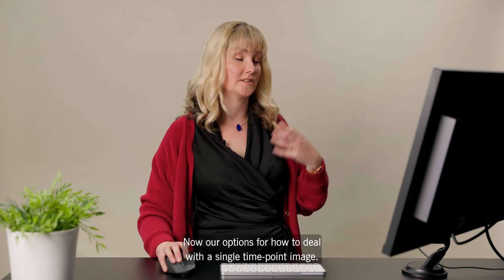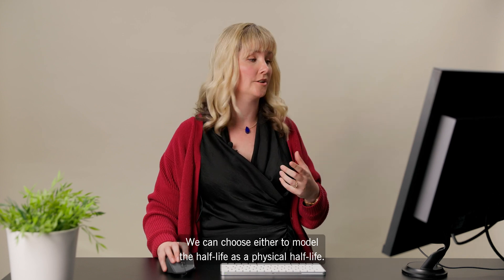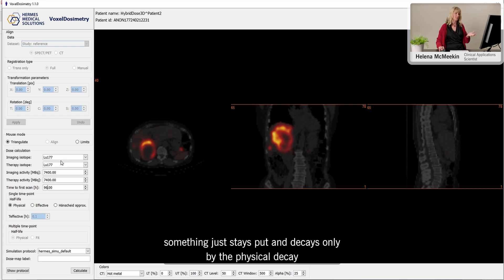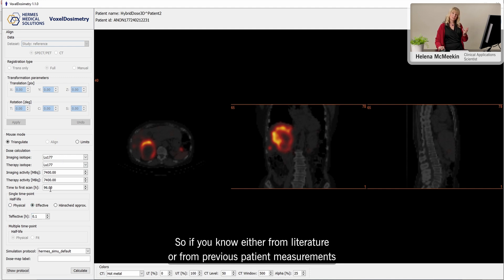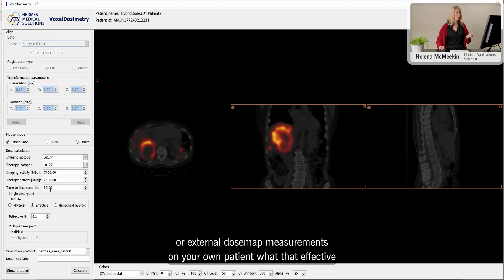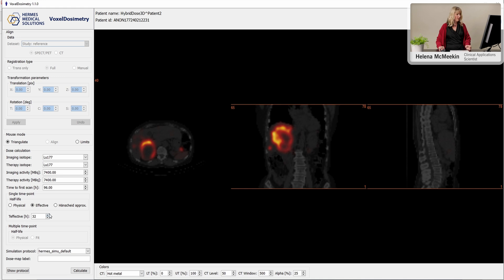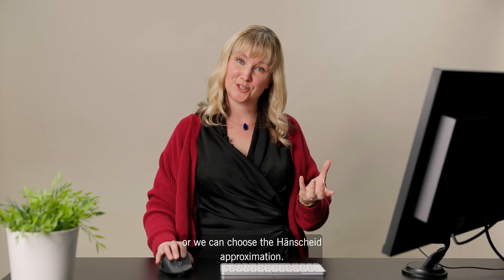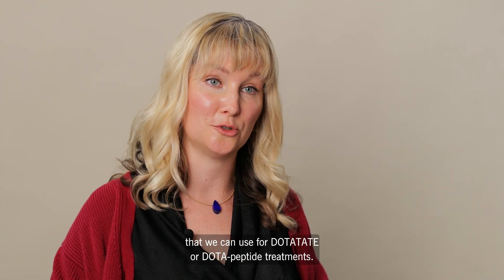Now our options for how to deal with a single time point image. We can choose either to model the half-life as a physical half-life — not ideal in most cases, but maybe appropriate for something that just stays put and decays only by the physical decay of the radionuclide. You can also choose an effective half-life, so if you know from literature, previous patient measurements, or external dose rate measurements what that effective half-life might be, you can type it into this box and it will be applied to every voxel in the image. Or we can choose the Hanscheid approximation — that's what I'll use today. This is a special dose approximation we can use for DOTATATE or DOTA-peptide treatments.